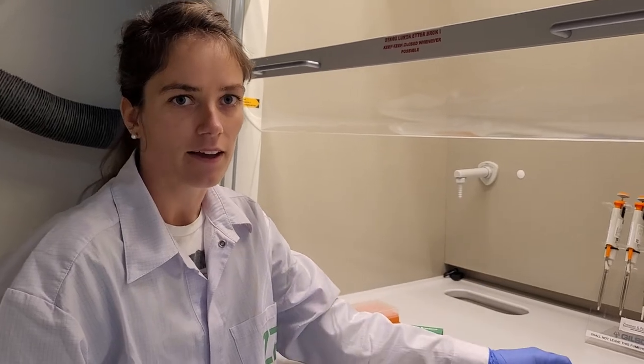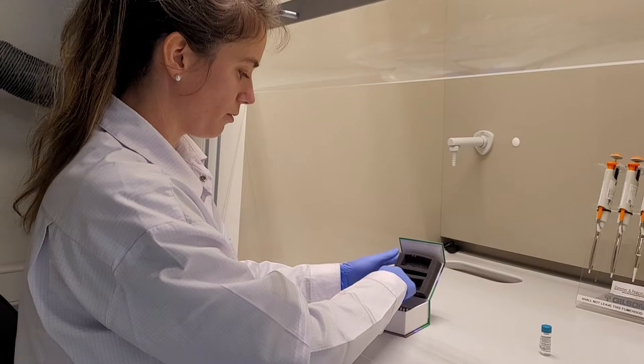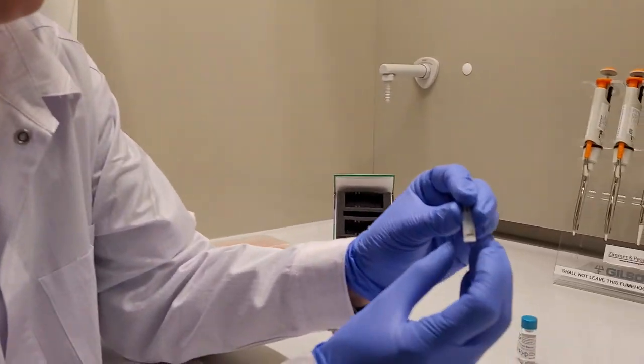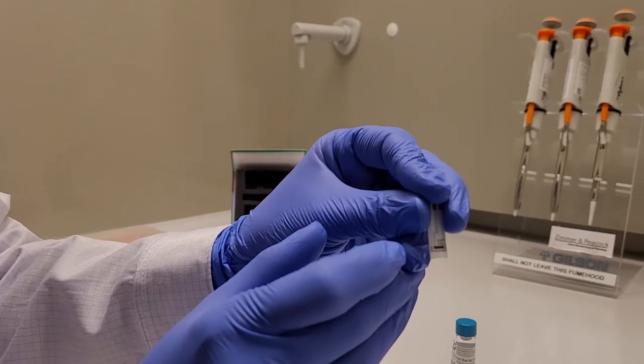For today we have our glucose sensors so we'll pull out one of those. Here the working electrode is the darker one in the center there and that's the one that we will be covering.